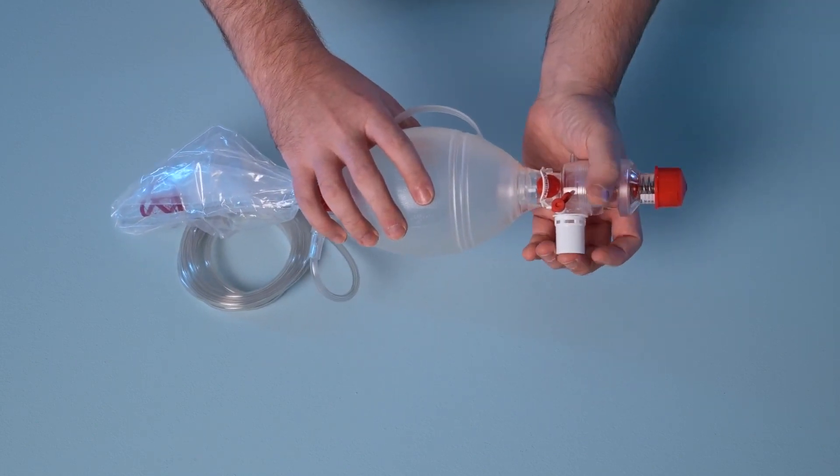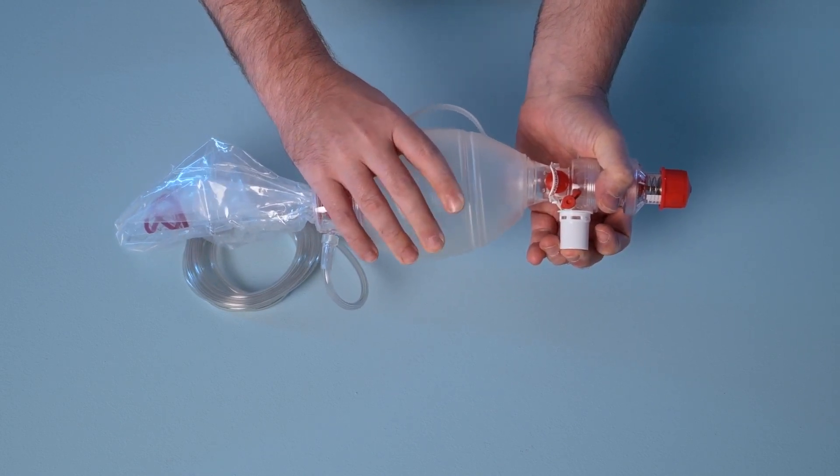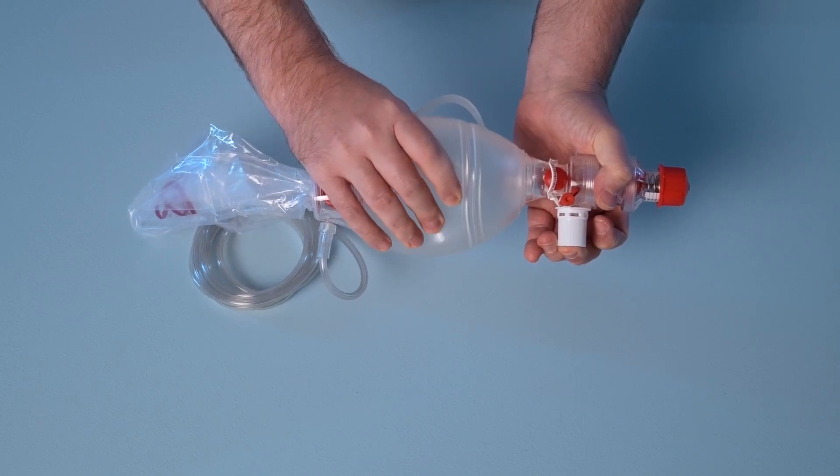Next, block the patient connector and attempt to squeeze the compressible bag. Resistance should be felt as the bag is compressed.